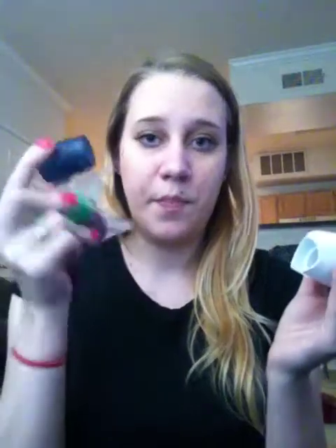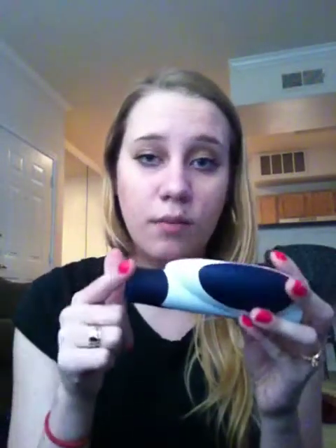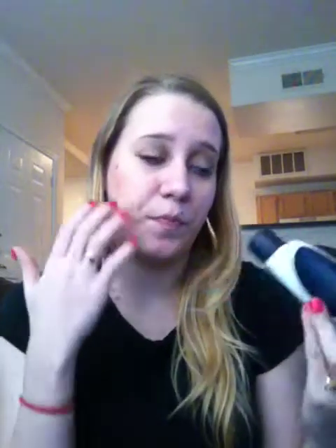It's really light and really small. It comes with a green mouthpiece and a purple mouthpiece, but the original one is just the blue one — I just haven't used the others yet. Every now and then I'll use an alcohol swab to clean the mouthpiece just because of germs.